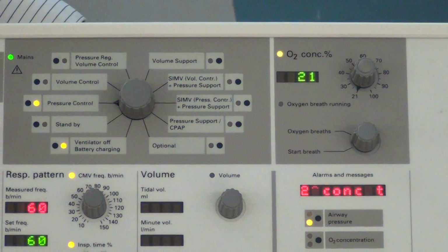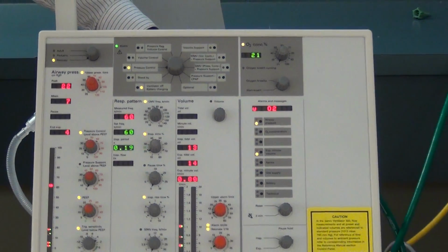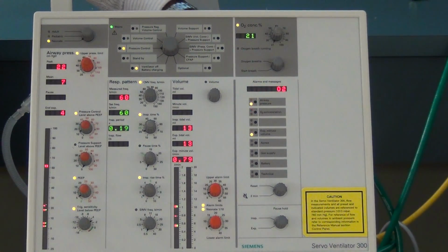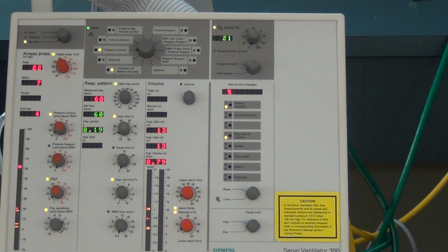So, questions, comments, concerns about this? Why is that flashing? What, this one? Yeah. O2 concentration. We have the O2 sensor disabled. When you were messing with the alarms over here, I noticed it changed to 1 where the green 60 is. It said 1 and then it flashed with parentheses, T something, TS behind it.